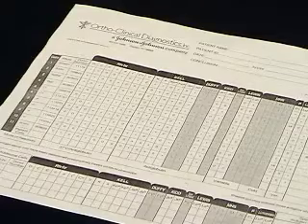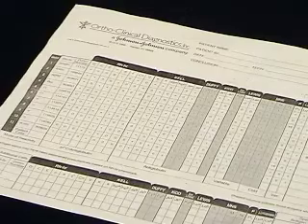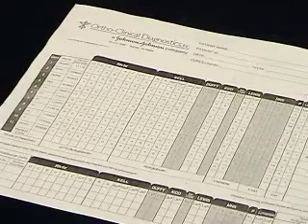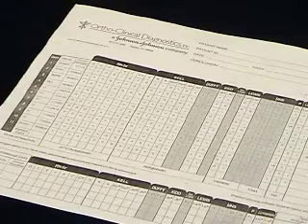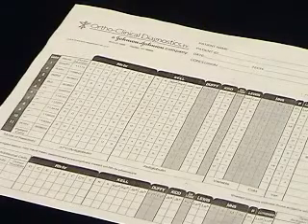When we have finished performing our testing and our results have been recorded, it is time to begin ruling out antibodies. The first rule in excluding antibodies is that we only use negatively reacting cells.